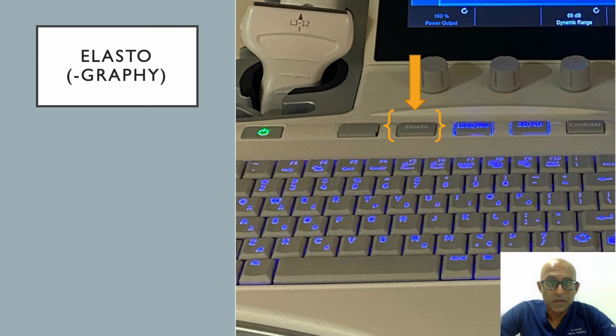The last tool to talk about is elastography. Elastography is used to assess the stiffness of tissue. While it's more commonly used in breast or liver scanning when assessing lumps or tumors, it can be used in musculoskeletal scanning for structures such as the patella or Achilles tendon or even the muscle, when you're looking for chronic disease or maybe even sarcopenia. Loss or excessive stiffness in the tissue could imply pathology within this area.